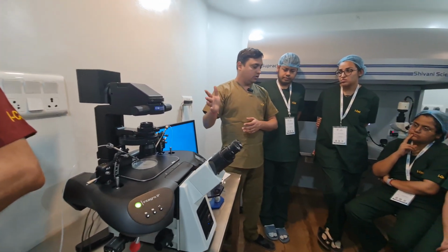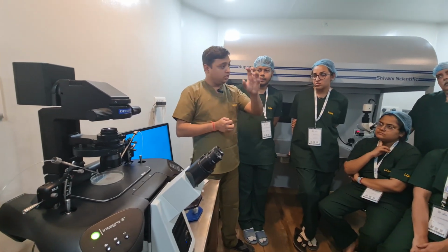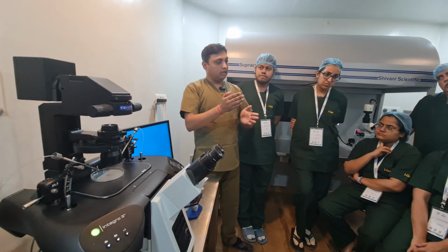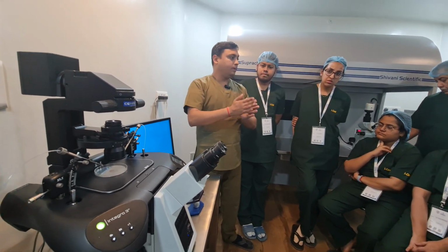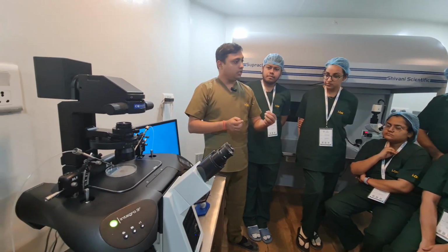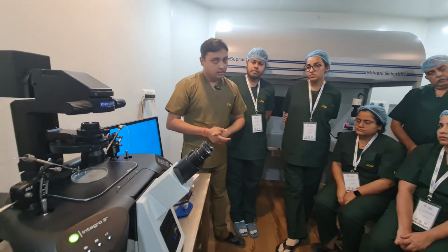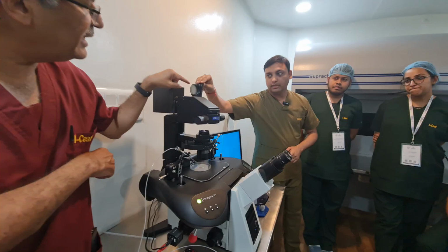In LED, it's already white, and there is only a filter which reduces the intensity, because there is an ND16 filter. You have light at 100%, right? So it reduces: 84% will go out, only 16% will come down. So it will not harm any type of your embryos in any case. What filter is it? ND? ND16. Where is it? Inside this, yes, ND16.